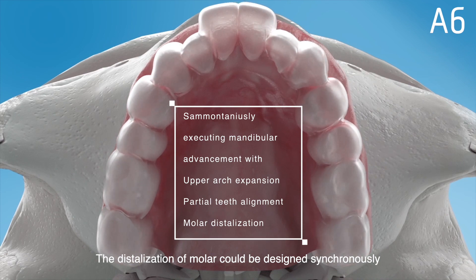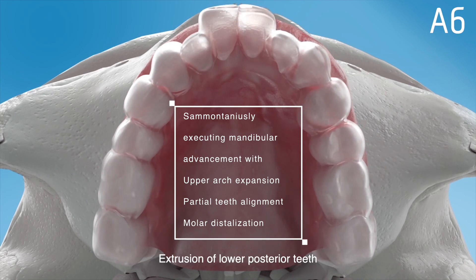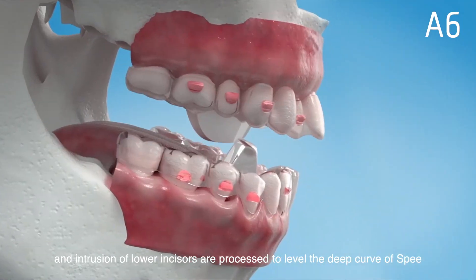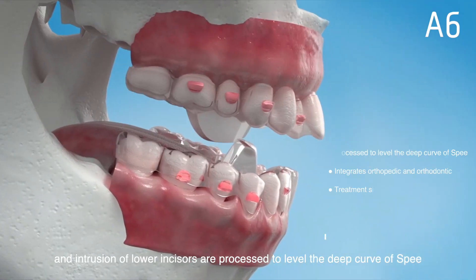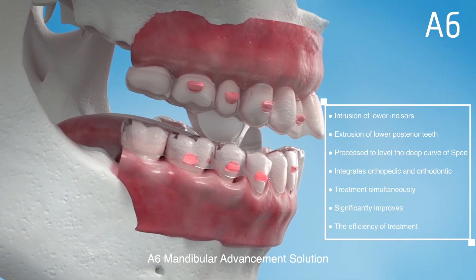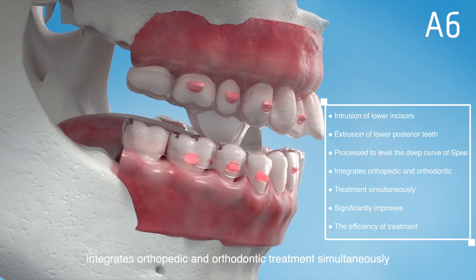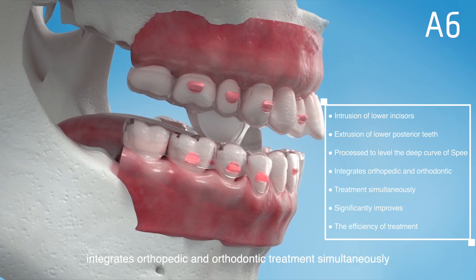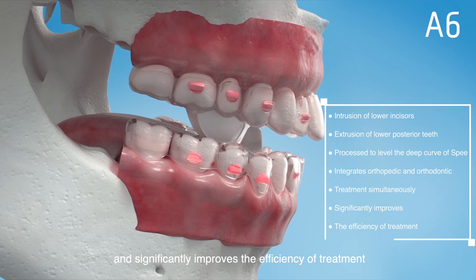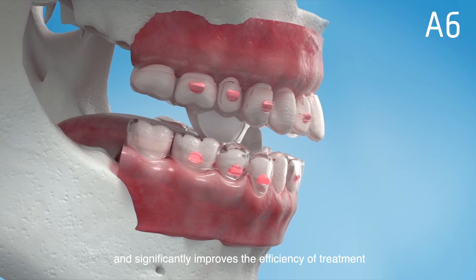Distalization of molars can be designed synchronously. Extrusion of lower posterior teeth and intrusion of lower incisors are processed to level the deep curve of Spee. The A6 mandibular advancement solution integrates orthopedic and orthodontic treatment simultaneously, significantly improving the efficiency of treatment.